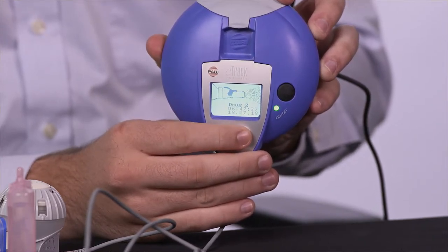If the nebulizer is working, there will be a green light on the base. If it isn't working, that light will be red.